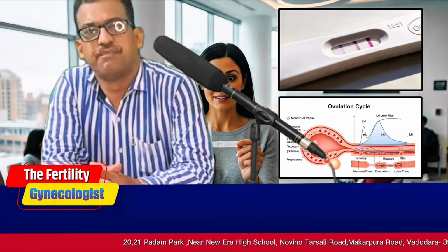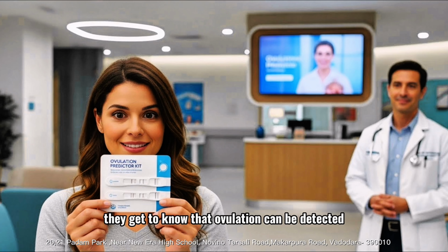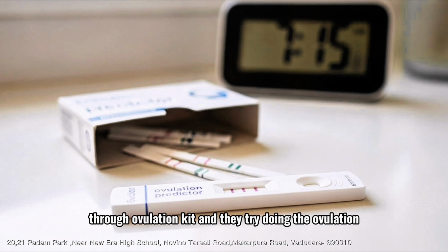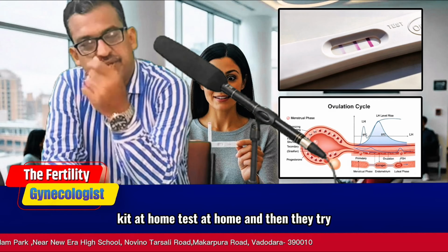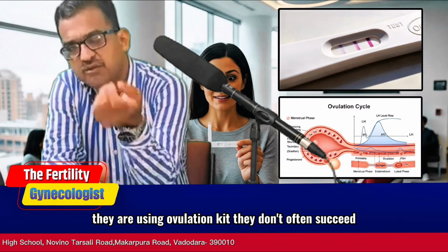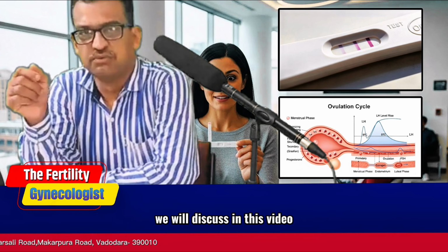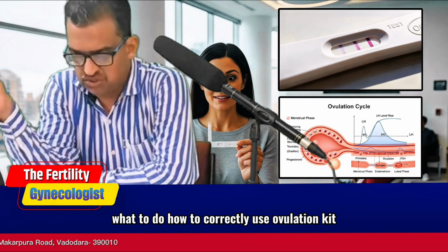Many people, when they come, they are trying to get pregnant. From somewhere, they get to know that ovulation can be detected through an ovulation kit, and they try doing the ovulation kit test at home. Most of the people who come to me after using an ovulation kit often don't succeed. We will discuss in this video how to correctly use the ovulation kit.